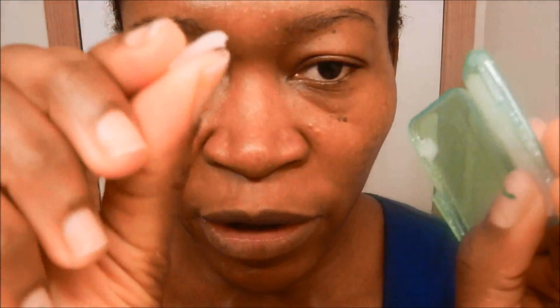So in order to solve that problem, I just take the wax from here, cut a little bit off — you don't need too much — and then I kind of play with it to make it a little bit soft and pliable. Then I put it right there where I feel the annoyance, and I mold it on the braces metal.